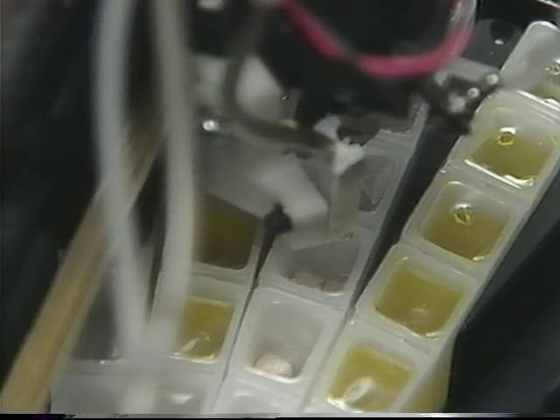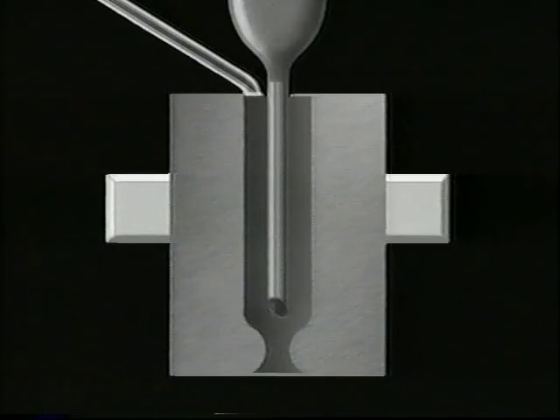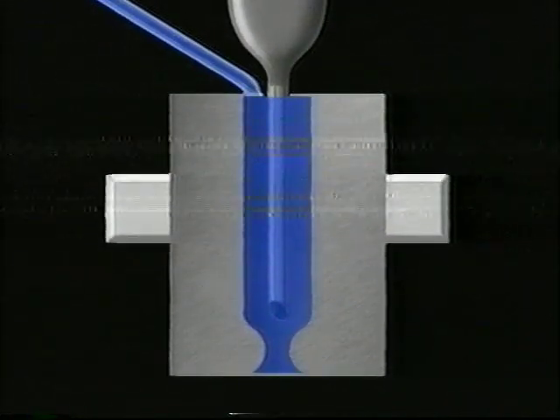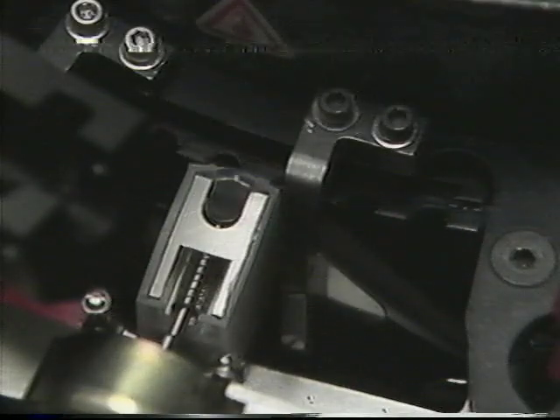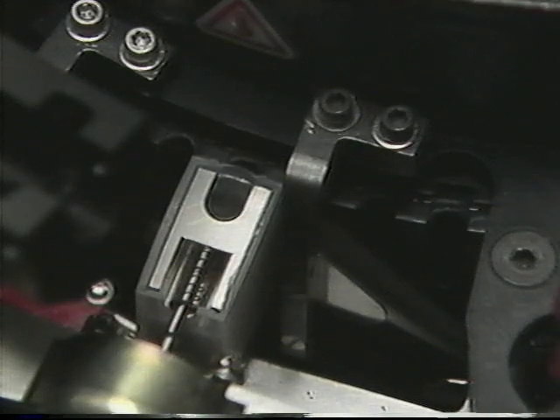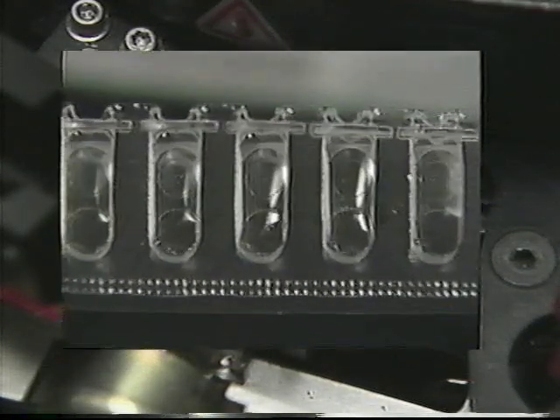For certain methods, the reagent arm prepares the Flex cartridges that contain tablets by adding water to hydrate and dissolve the reagent ultrasonically. Also, 2 or more liquid reagents can be mixed together in an empty well to form working reagent. A vacuum drain system travels with the probe to eliminate any reagent carryover. By flushing, rinsing, then vacuum drying the probe, reagent integrity is continually maintained.